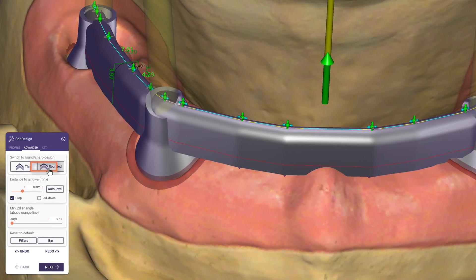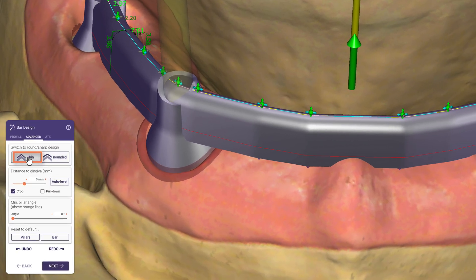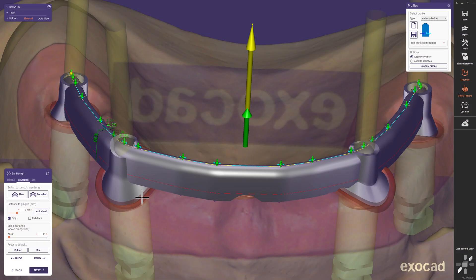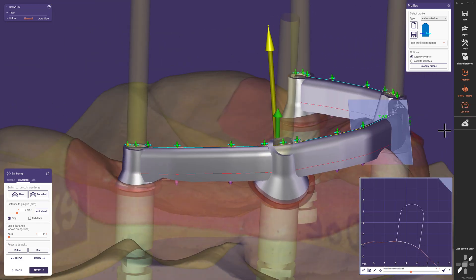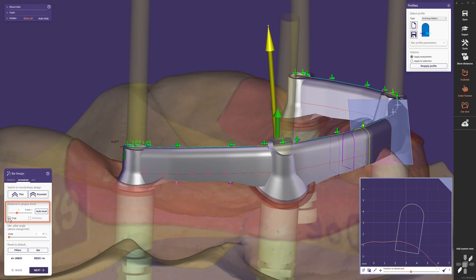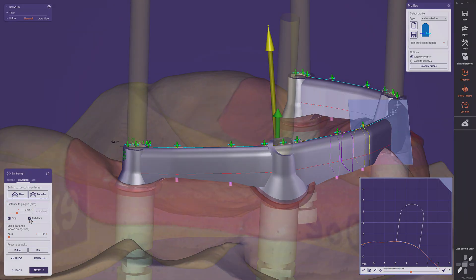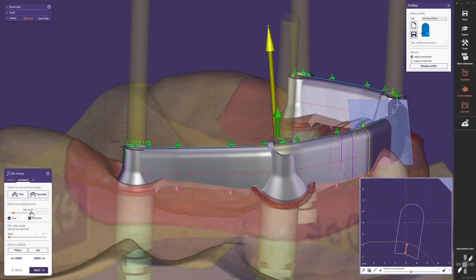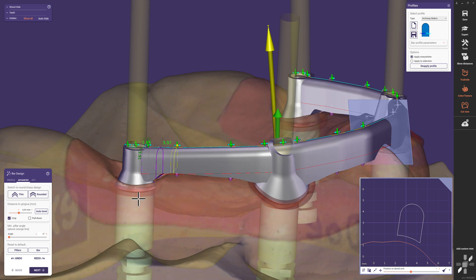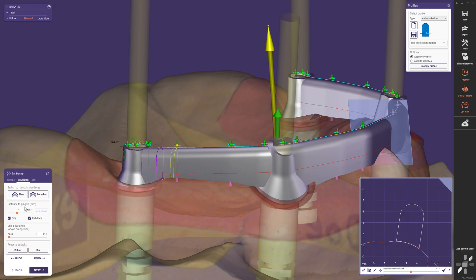Now focusing on the bar profile: the Advanced tab offers an option to switch from sharp to round edges. Looking at the basal design of the bar using the cut view, manually pulling down the icons below the gingiva shows that 'Crop distance to gingiva' is activated. Selecting the pull-down checkbox changes the basal area icons to indicate the already-cropped basal area is now combined with a predefined distance. Setting a negative value here easily adds a constant pressure or distance to the gingiva, and we can also manually adjust each area for example to create space around the implants for easy cleaning.